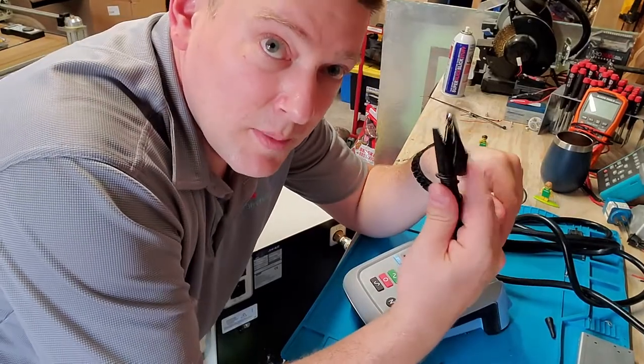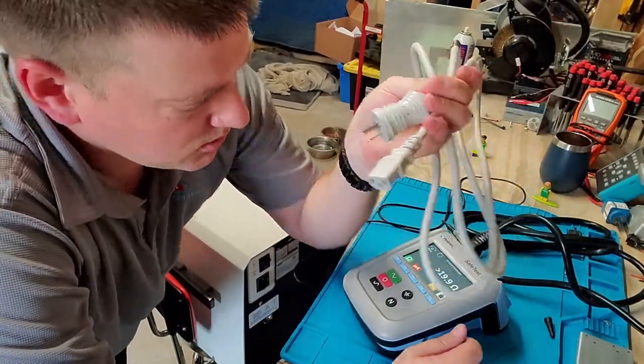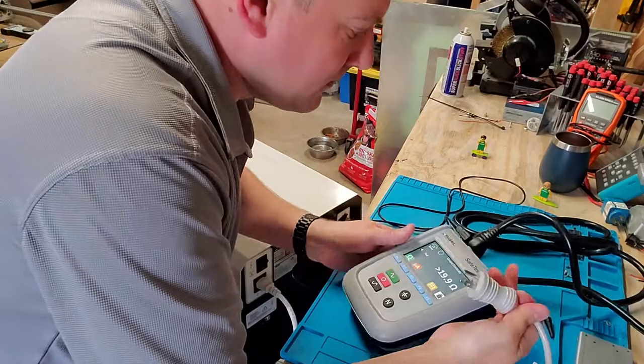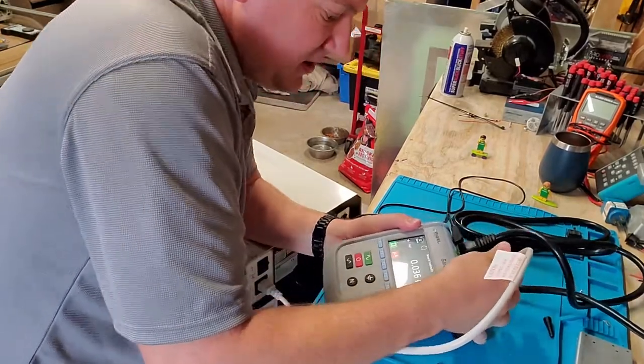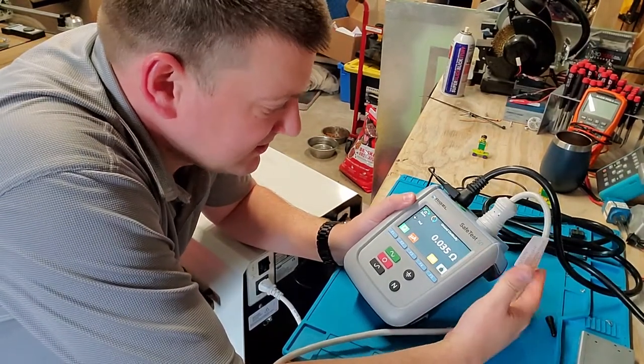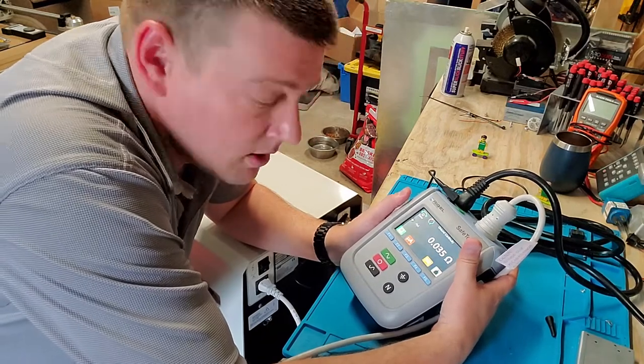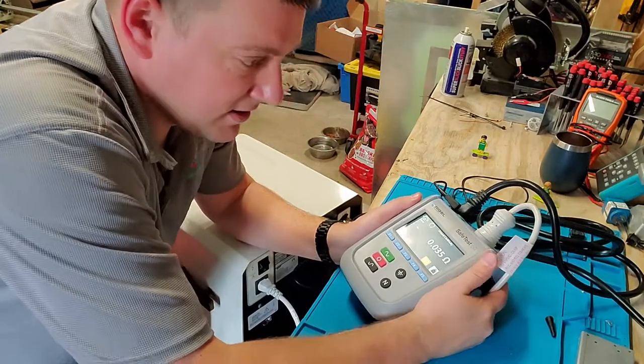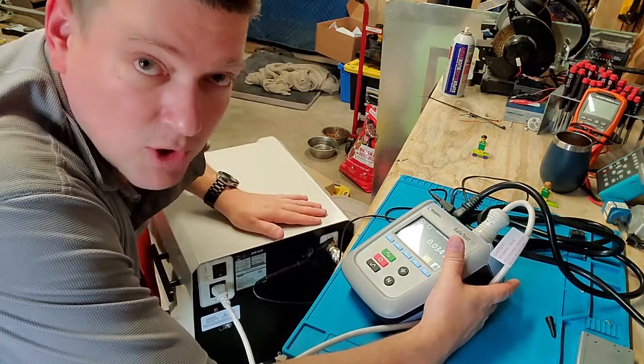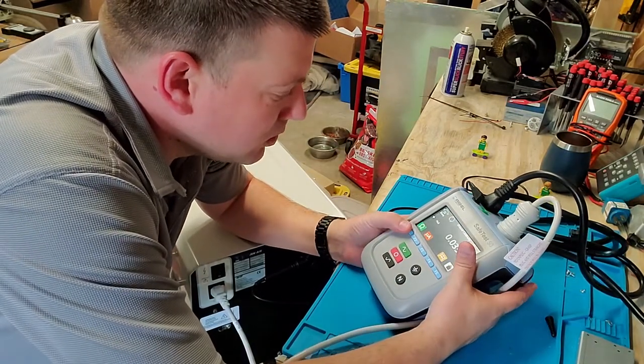I'm going to plug the gator clip on and connect it to my medical device. I have a brand new medical grade power cord here. I'm going to plug this guy in. You have to really love how big the numerics are on this guy. I've got 0.035 ohms. That's really good. Mind you guys, your ohms should be at 0.5, so I told you that this is definitely a solid connection. I'm connected to a gas port right here.